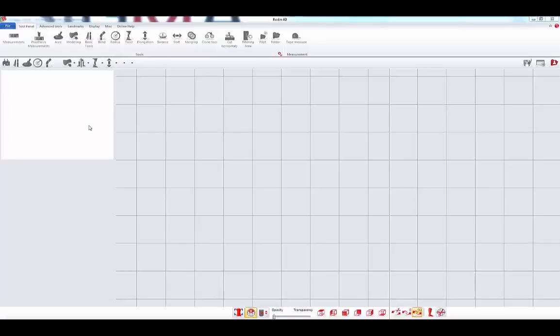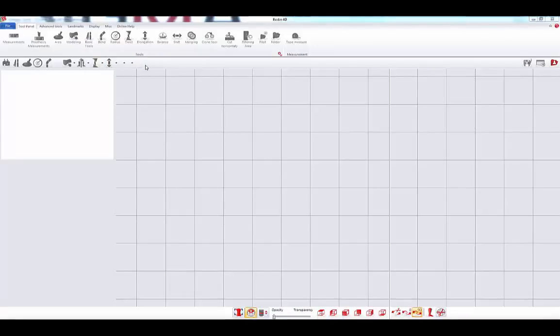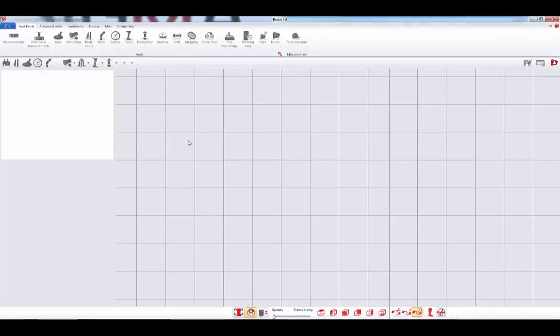The workspace is now organized around the 3D view and a ribbon menu. A shortcut bar that you can customize gives you even quicker access to the functions you use the most.